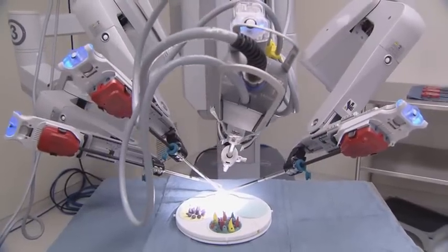We have behind me here the da Vinci robot, which is the latest innovation in surgery. It has been around for several years, but we recently acquired one here at our hospital at Baylor Irving.